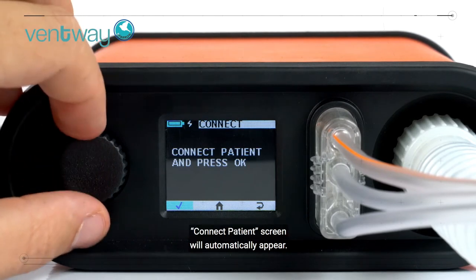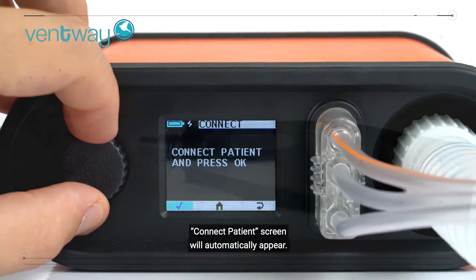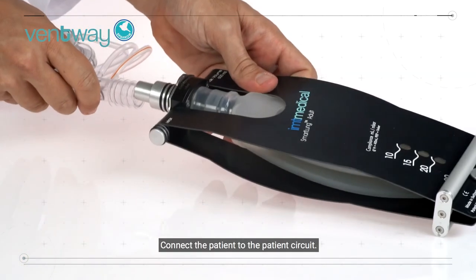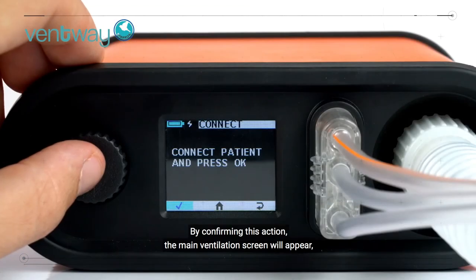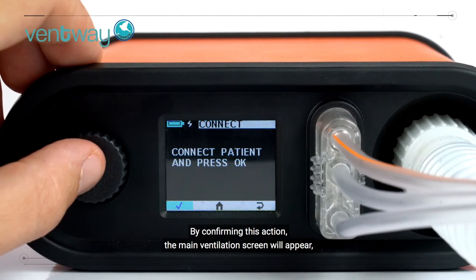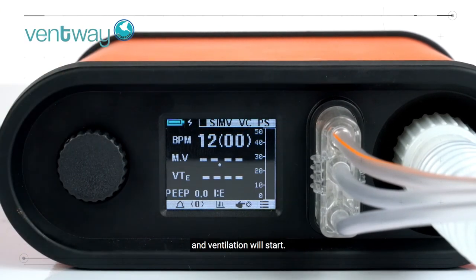The connect patient screen will automatically appear. Connect the patient to the patient circuit. By confirming this action, the main ventilation screen will appear and ventilation will start.